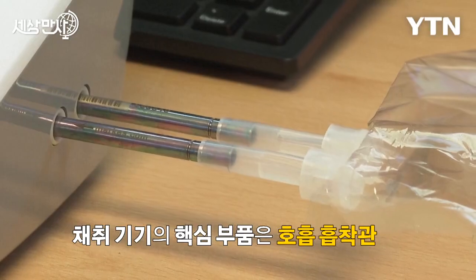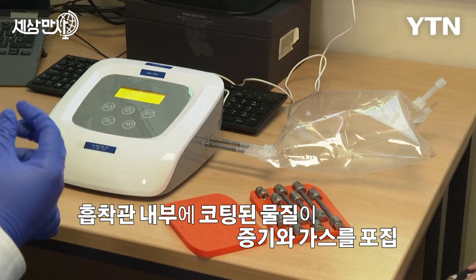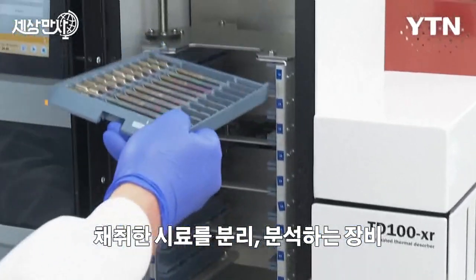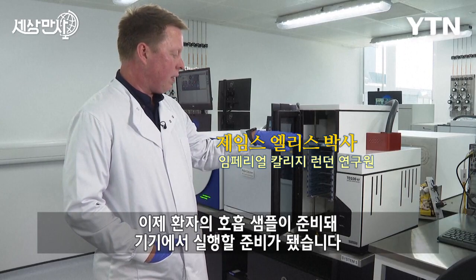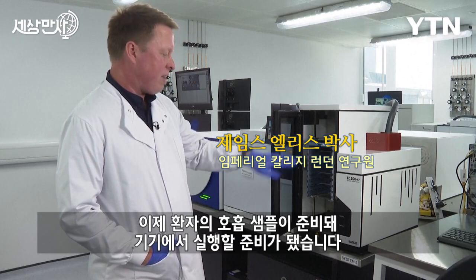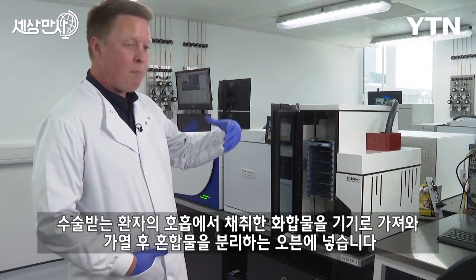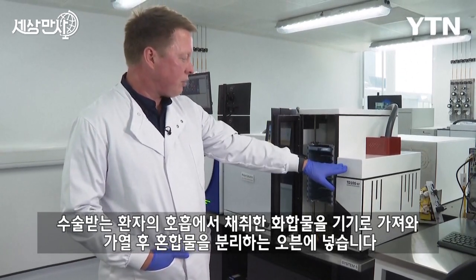Bag onto the tubes in the device. So steel tubes with a sorbent inside, so they're specially made for volatile compound research. So we have the sample, the patient breath samples, which we've prepared and are now in the instrument ready to be run. The thermal desorber here will heat them up and take the compounds that we've collected from the patient breath at the GP surgery onto the instrument.